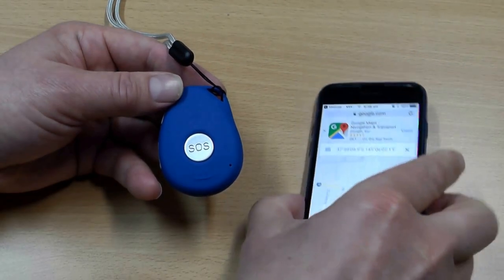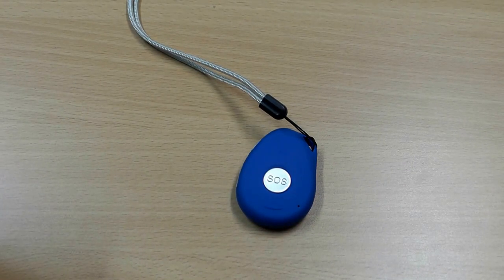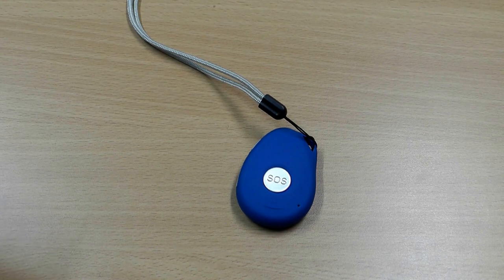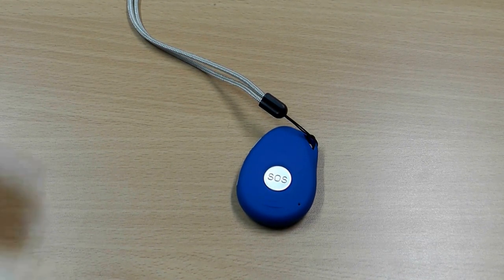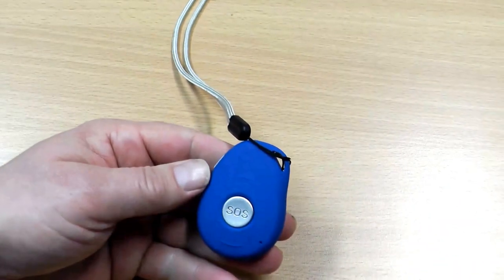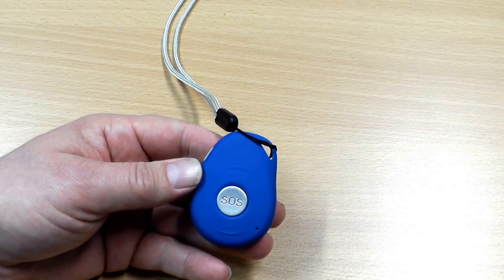What I can then do is call into the SafeLife Pendant. So if I ring the number of the pendant, which I'll just do now — I'm calling the SafeLife Pendant and it will ring in a moment and it will answer automatically.